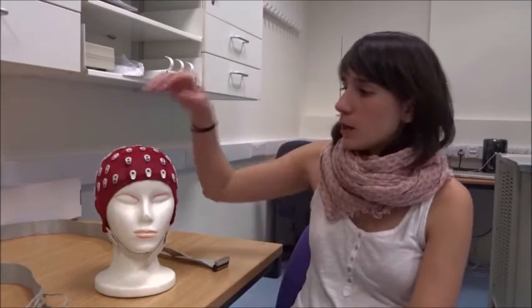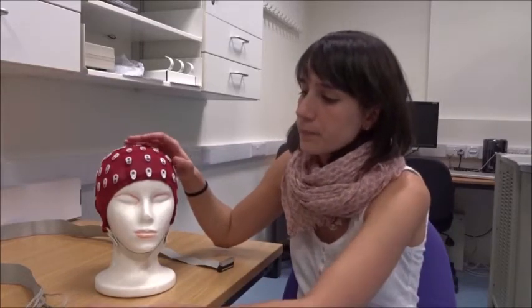I'm going to talk about electroencephalography, or EEG. EEG is a technique that records the activity of the brain. When neurons activate, they produce electromagnetic fields that we can record from the scalp using electrodes.